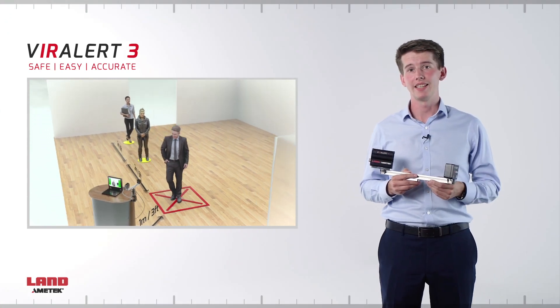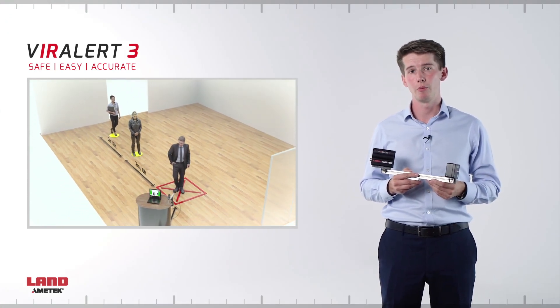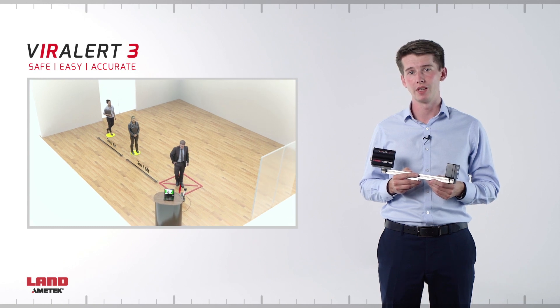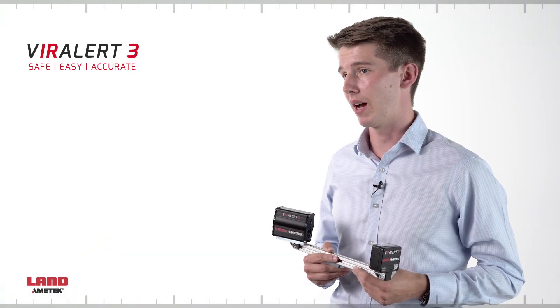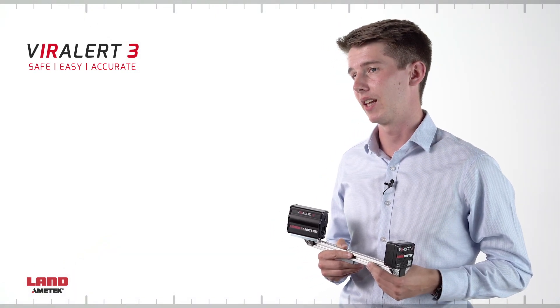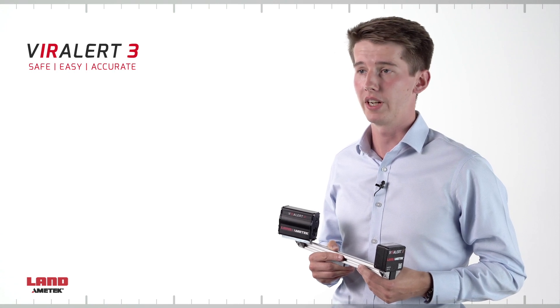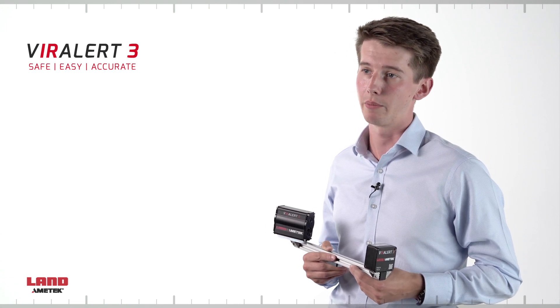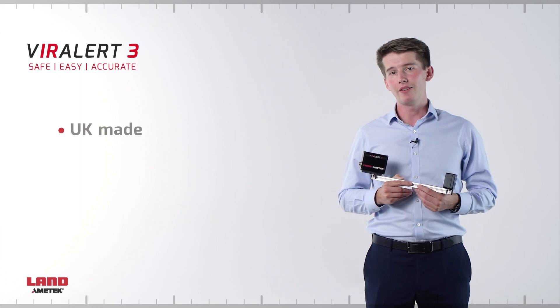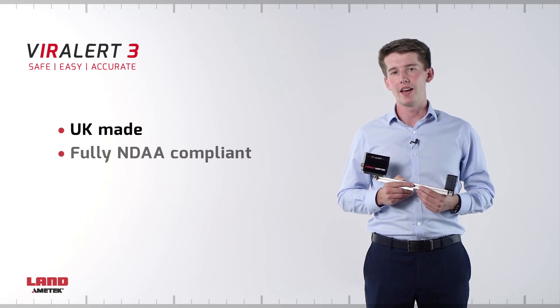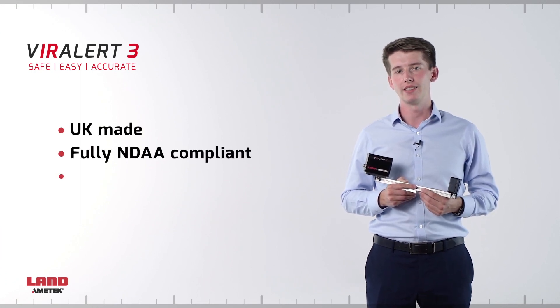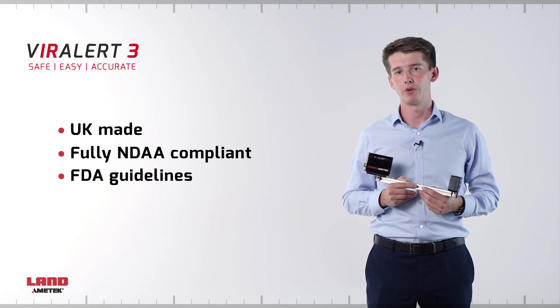This compact system is easy to set up and use, removing human error from the screening process. Viralert 3 is backed by all the expertise Ametek Land has to offer, including more than a decade of development of human temperature screening. The UK-made Viralert 3 is fully NDAA compliant and conforms to the latest FDA guidelines for temperature screening.